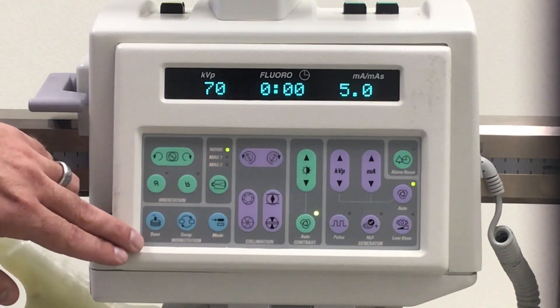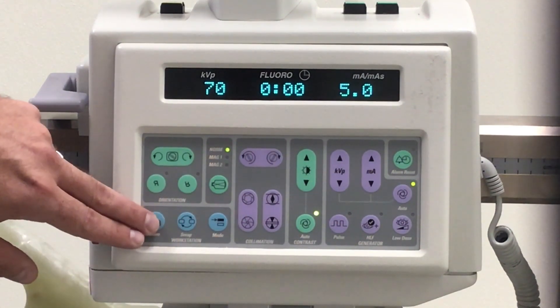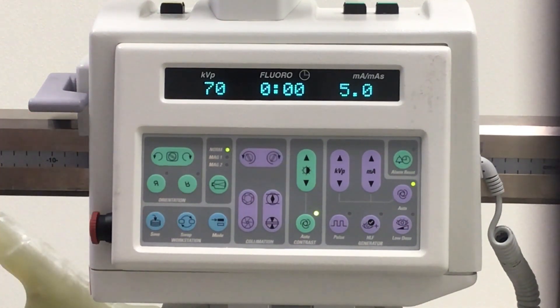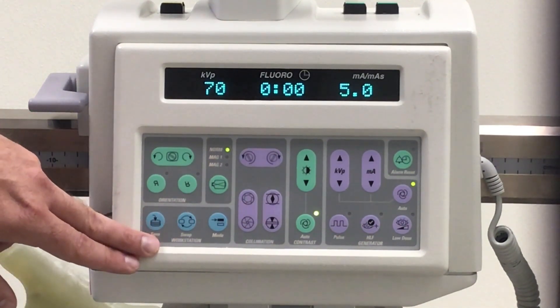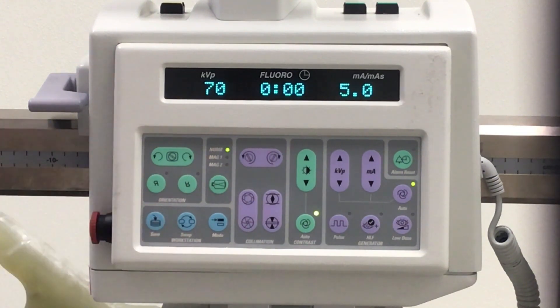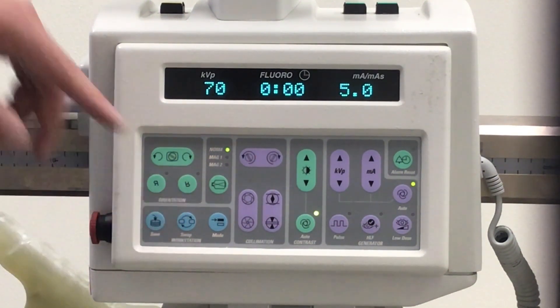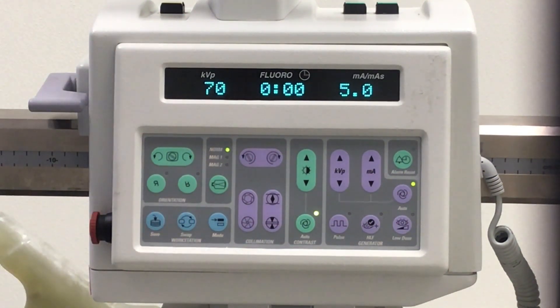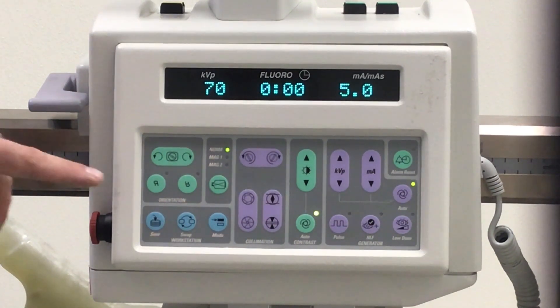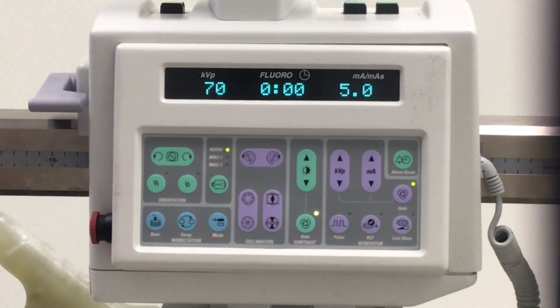Down here we have our save button so you can conveniently save from the actual C-arm. We have our swap workstation button. What that's going to allow you to do is take your image from the left monitor and simply move it over to the right for the doctor's reference.